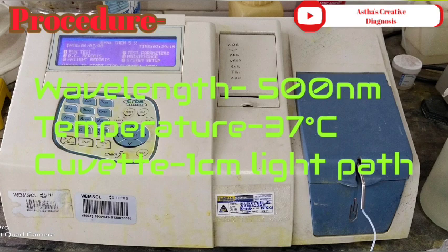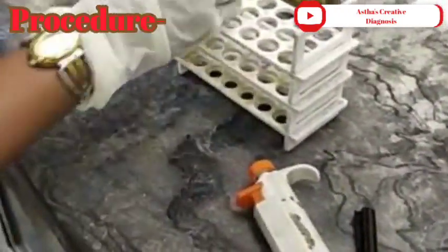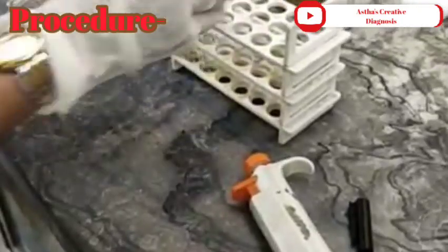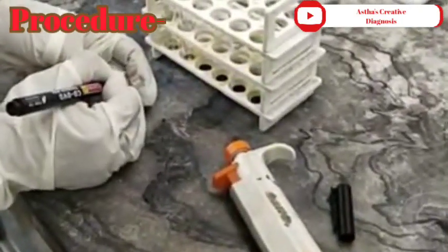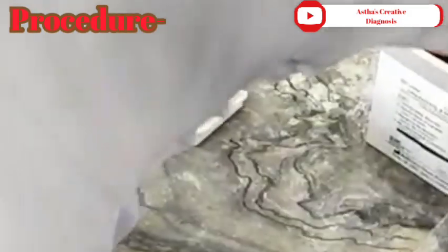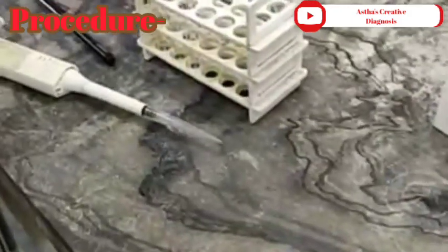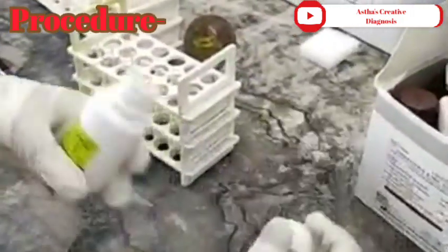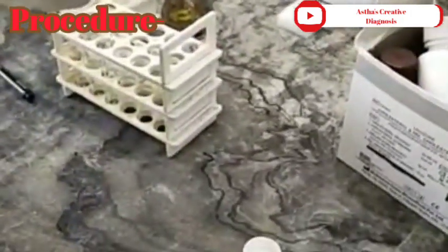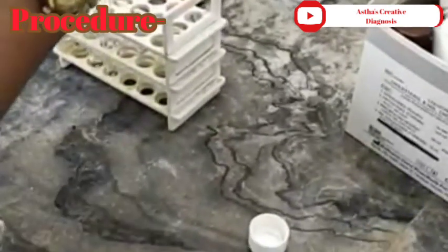Now I am discussing the practical procedure. First, take clean dry test tubes and label them: B for blank, S for standard, and mark the sample ID on the remaining test tube. Then add 1000 microliters of Reagent 1 into each test tube.